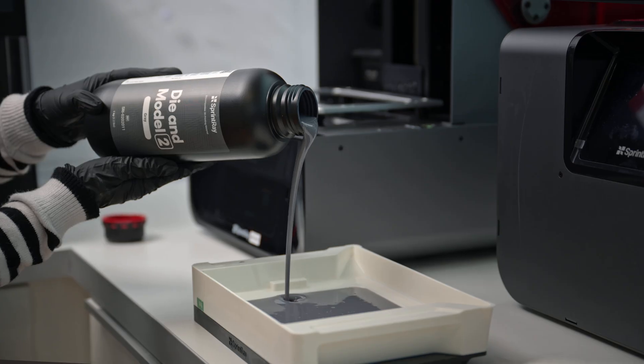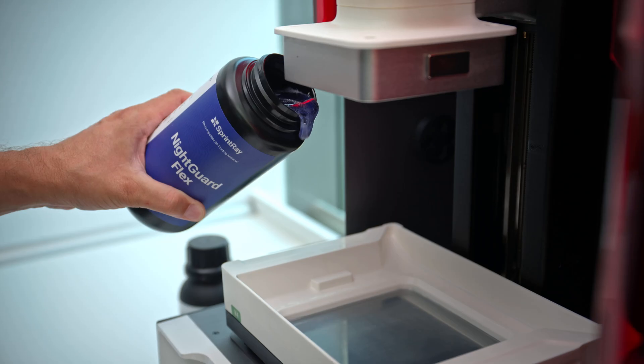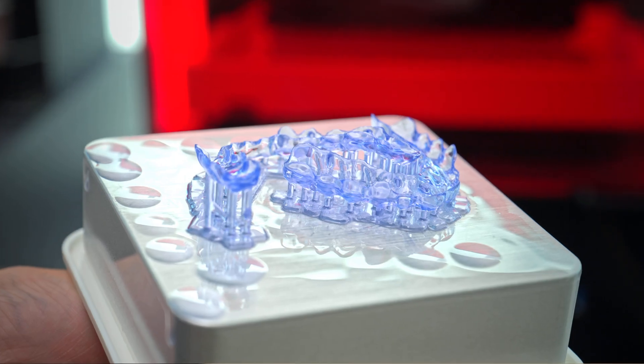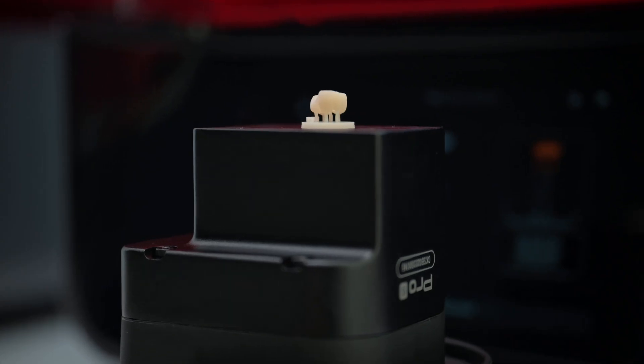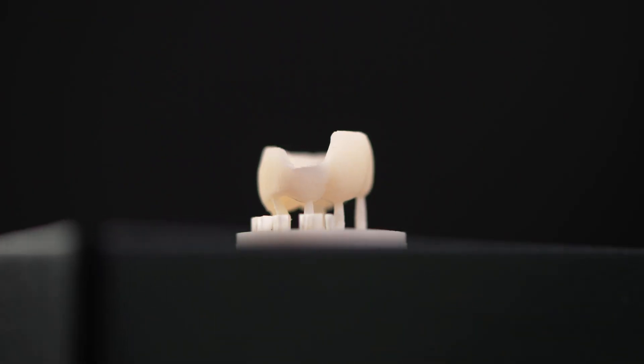You might want a dark resin with good contrast for a study model, a semi-flexible transparent material for splints, a durable tooth-colored material for printed temporaries, or a printable hybrid ceramic for final restorations. After deciding on a suitable resin, you're ready to set up the printer.